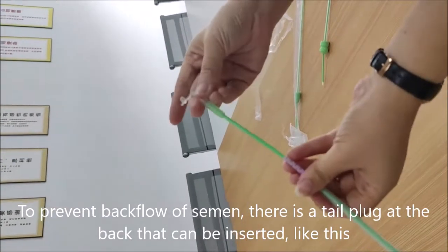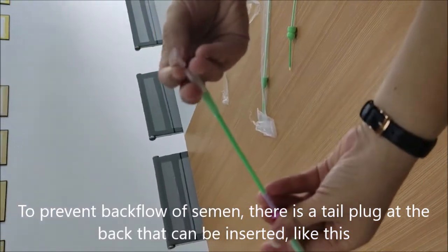To prevent backflow of semen, there is a tail plug at the back that can be inserted, like this.